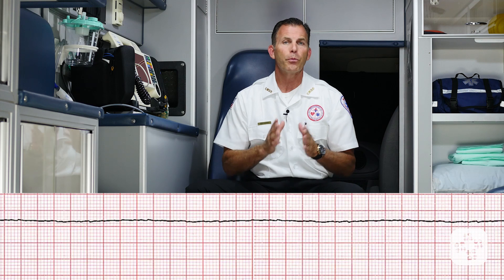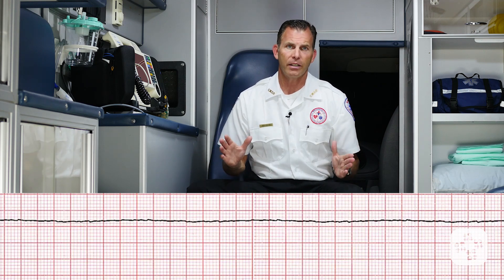As we look at the monitor, here is what we see on the ECG. Basically, it's just a flat line.